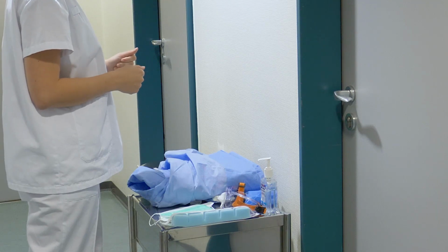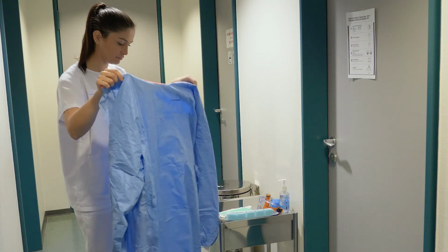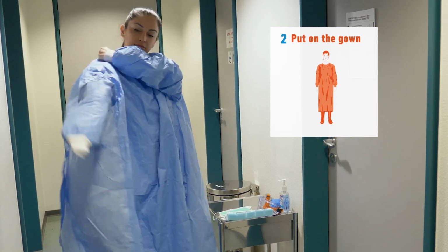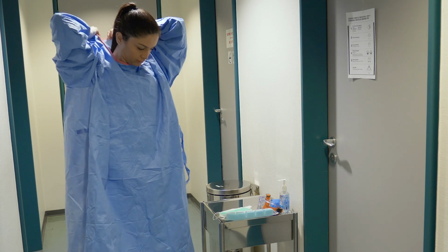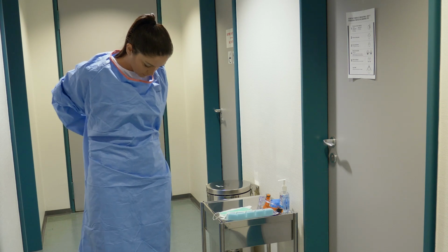So now that you're ready to put on the equipment, check the integrity of the equipment and do not use any damaged equipment. Now you're ready to put on the gown, so tie back the long hair if applicable and inspect the equipment for damage prior to putting on each piece. Put on your gown, tie it around the neck and the waist, and secure it around the back. Ensure all clothing is covered by the gown.